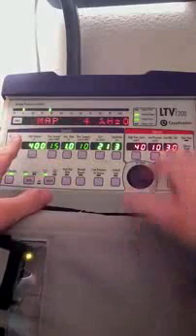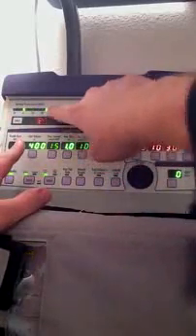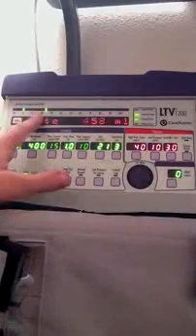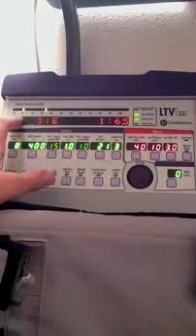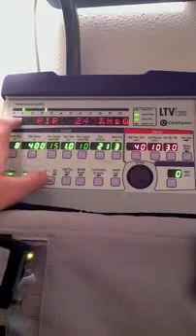Now, if you can see up here, just like I said, with every breath this little bar goes up, and that's my peak inspiratory pressure. I can also monitor the PIP down here as well. You can see that this is scrolling through different information, so let's manually scroll through the different types of information here and see what we have.